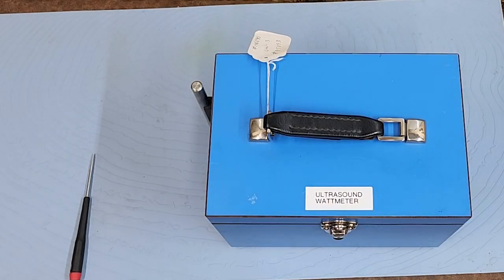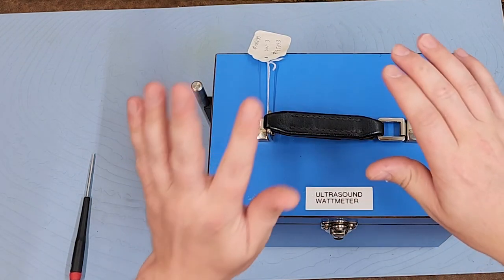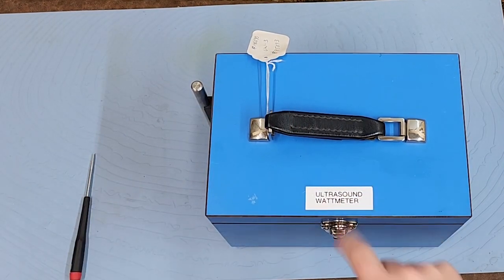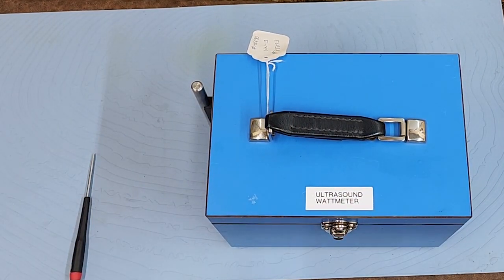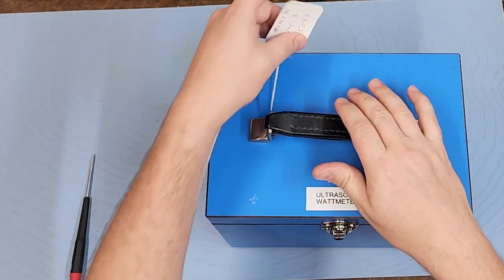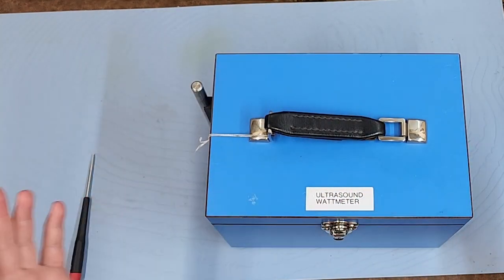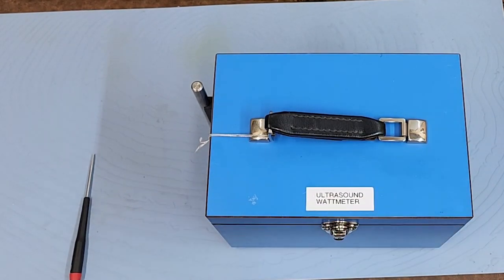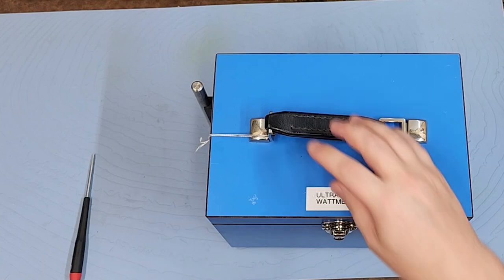Hey everyone, welcome back to Better Biomed. Today we are going to continue on the journey of vintage test equipment. As you can see from the label right here, I have an ultrasound watt meter. Now this is almost the exact ultrasound watt meter that I trained on 20 years ago, and it was an old vintage piece of equipment at that time.